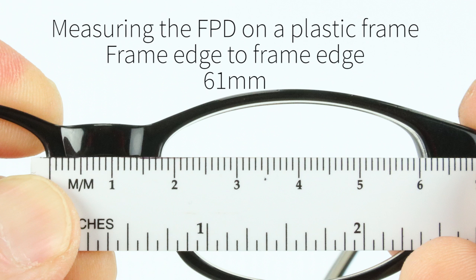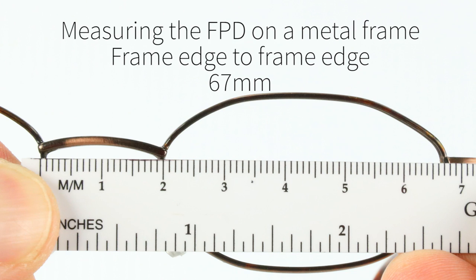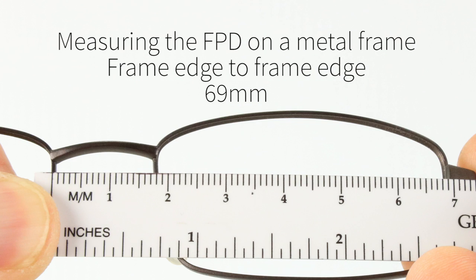Make sure you're getting the same counts that I am. Here I'm measuring where the edge of the lens will eventually fall within the eye wire. Here I'm measuring the B on a metal frame edge to edge and this time I get 26 and a half millimeters. Obviously the higher the prescription, the higher the power of the lens, the prescription that you're working with, the more important these measurements are going to be. Here I'm measuring the A on the lens edge to lens edge and I get 45.5 millimeters. Here I'm measuring the DBL on a plastic frame, lens edge to lens edge and I get 16.5. Hopefully you're starting to get the idea here. Measuring the A on a plastic frame edge to edge, beautiful, crisp, clean 44 millimeters. And here are three examples of measuring the frame PD which I'm going to cover in just a few minutes.